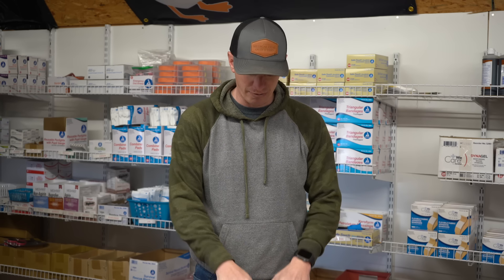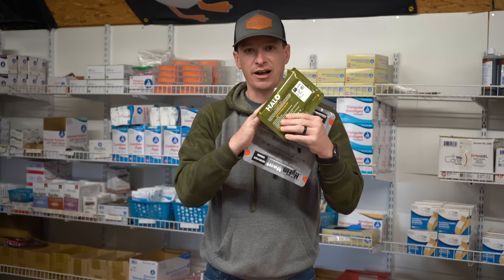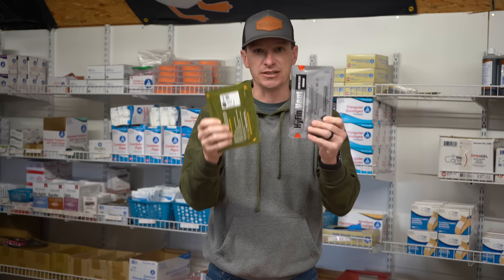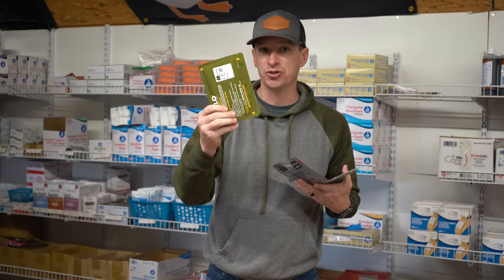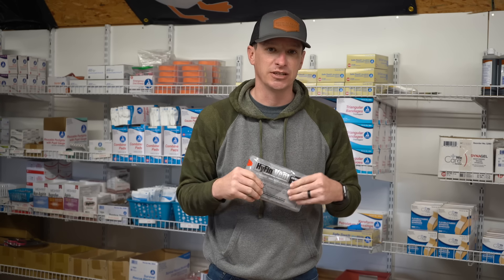Let's look at respiratory. Typically we're going to see chest seals — anything from neck to abdominal area, we put a chest seal on. There are plenty on the market, but the two I'd look at are the Halo chest seal and the Hyfin chest seal. These Halo IFAKs are fairly new to market. The Halo used to come in big packaging, so I really like the Halo IFAK because it now comes in similar packaging to the Hyfin. One pack of these — which comes as a two-pack for front and back — will be just fine for your trauma kit.